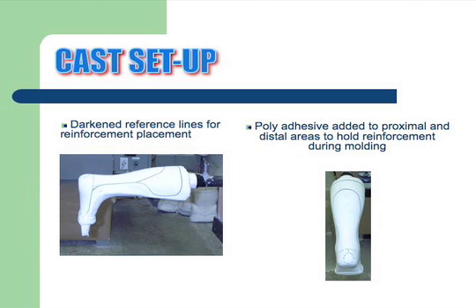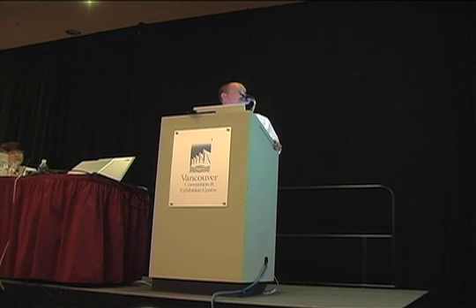The pink is the posterior one. The brown would be the planter section, and the opaque would be the main body and secondary nylon. Place them up by the posterior reinforcement.